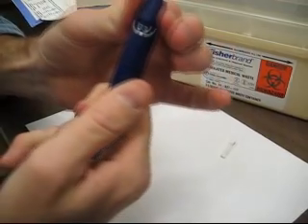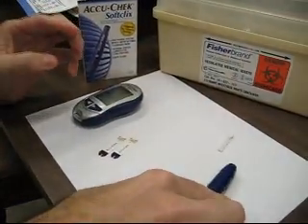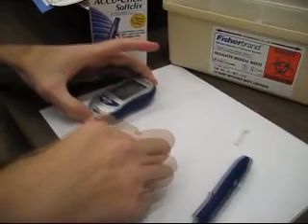Adjust the depth setting. The thicker your finger, the higher the number. Two and a half should work.